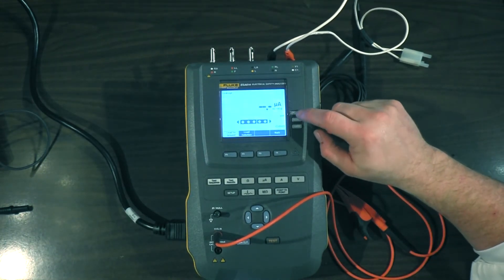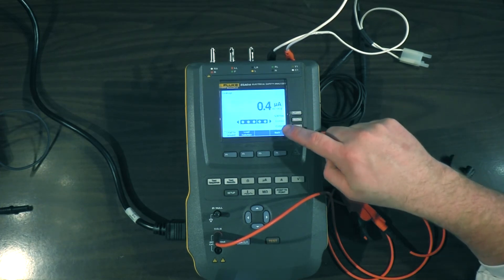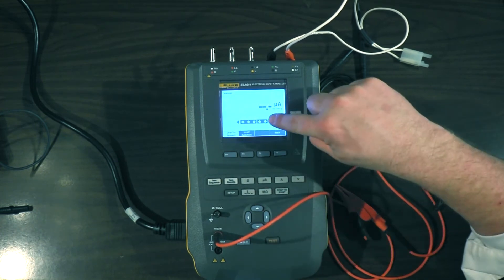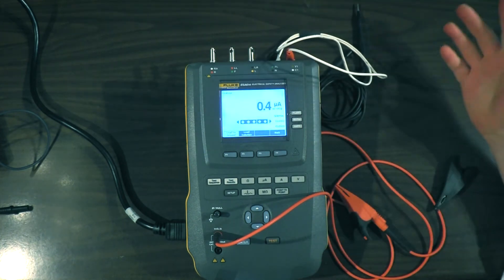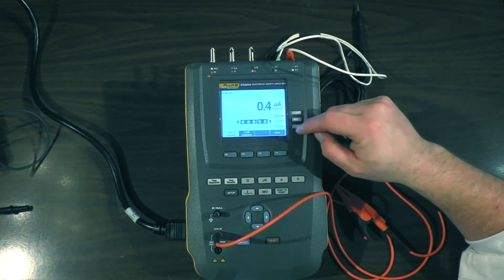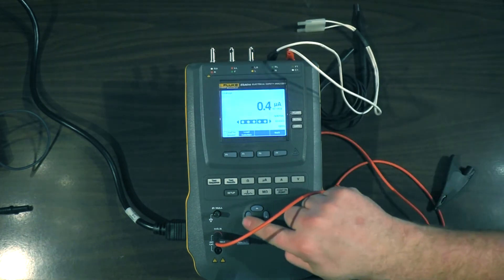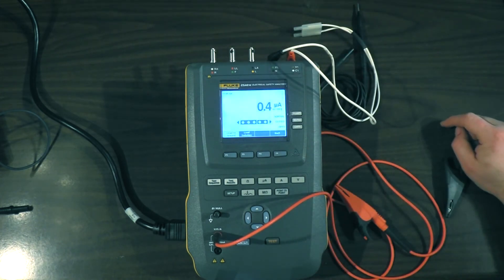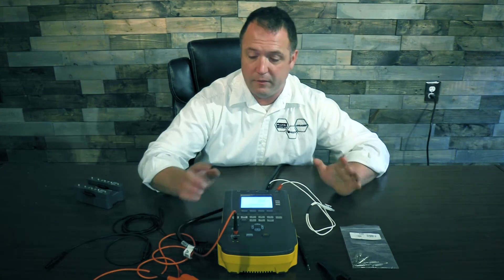Now I'll close my earth so I have normal polarity, normal condition. I'm highlighted on these three leads — simply hit the over-arrow and here's my leakage: normal polarity, normal condition for my hands-free adapter. Then I'll raise the earth and I have single fault condition for my hands-free adapter. Over-arrow and I can have single fault condition for my three ECG leads.